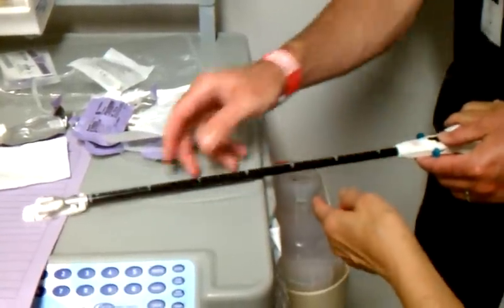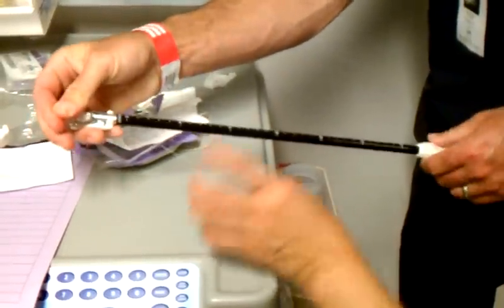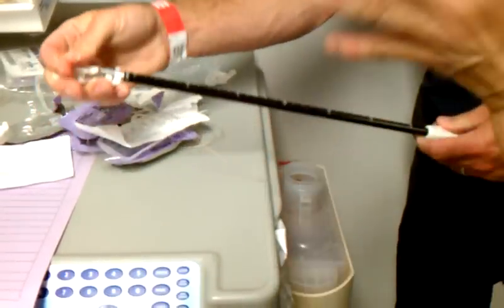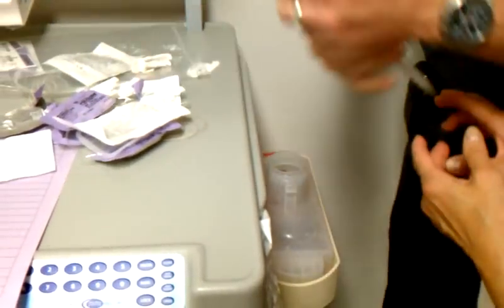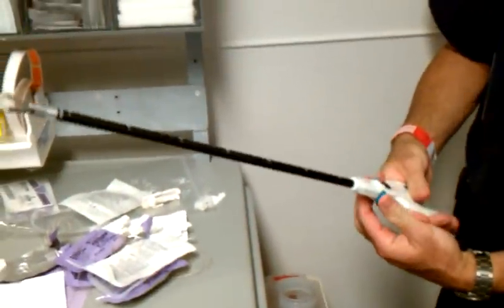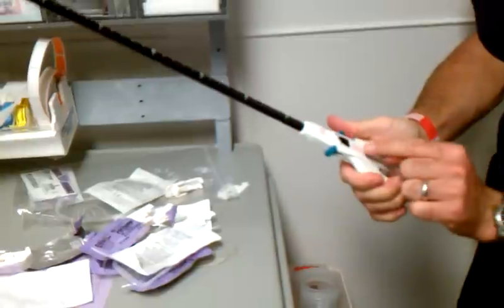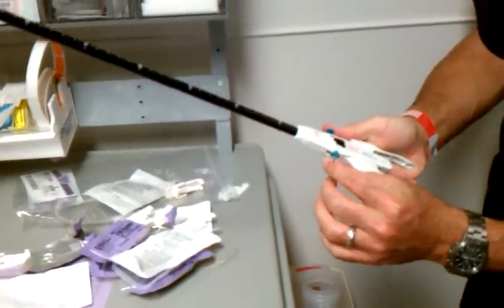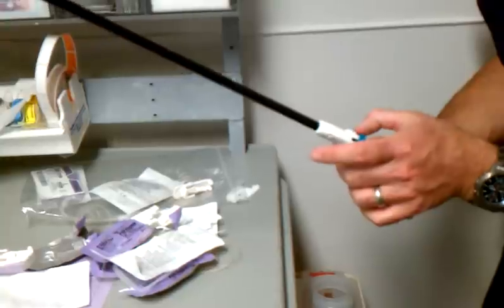That's the pop-up — push up and the needle up. So if we squeeze this pop-up down, that loads the needle. Now we'll toggle. Now we want to unload, so we line up. We've got to squeeze it like it says. Line up the arrow like so. There's a top and a bottom button — you've got to push in and up. So I'm pushing in and then up, and then these rabbit ears are going to pop out. See the rabbit ears right there? That popped out. And then the needle will fall out — pull it out.